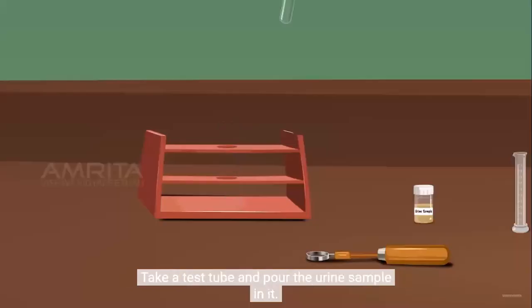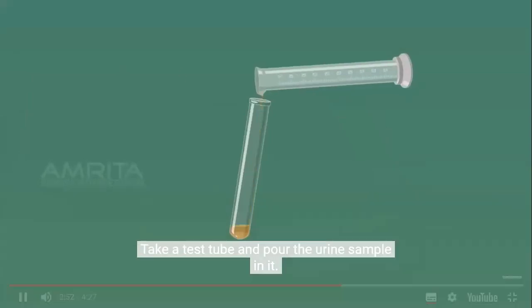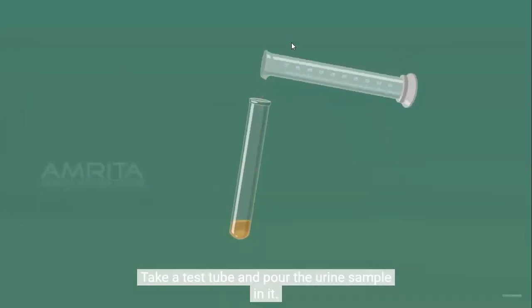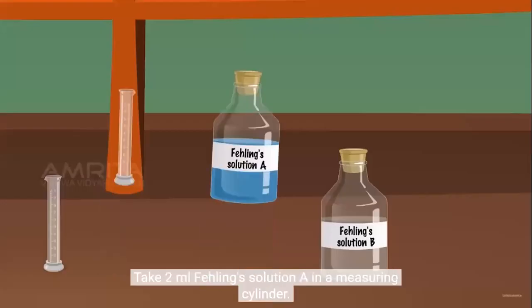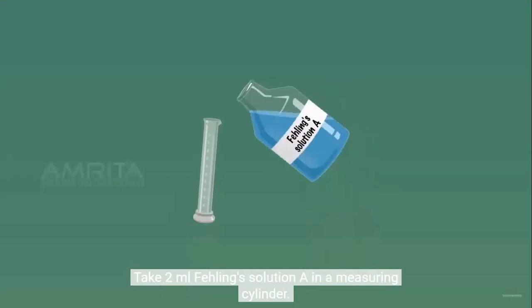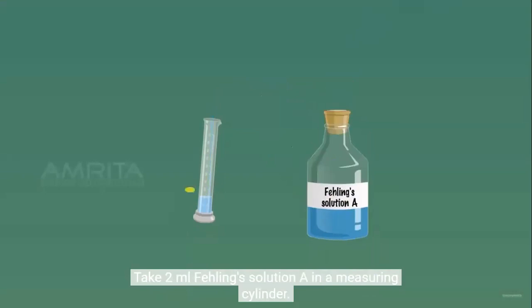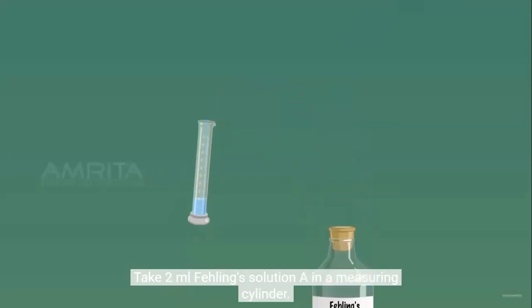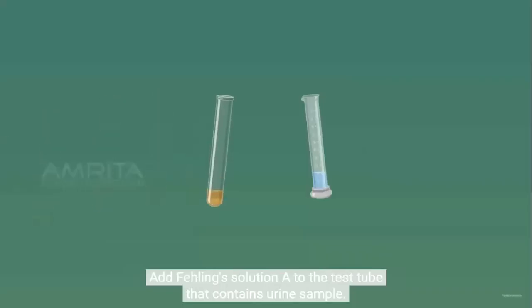Take a test tube and pour the urine sample in it. Take 2 ml Fehling's solution A in a measuring cylinder. Add Fehling's solution A to the test tube that contains the urine sample.